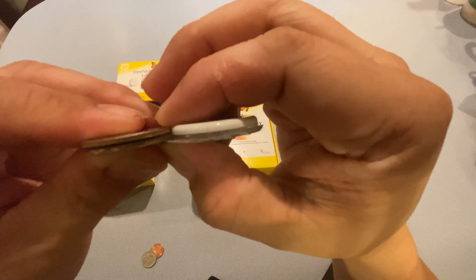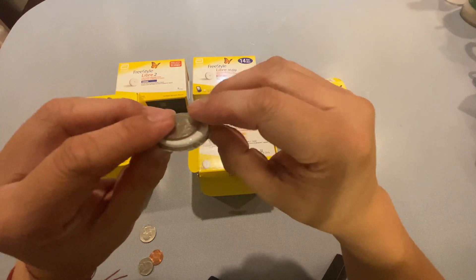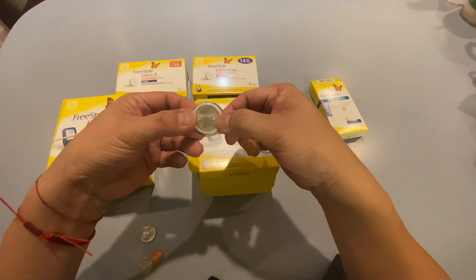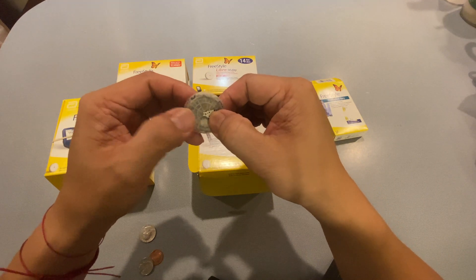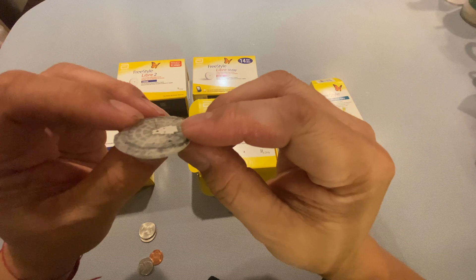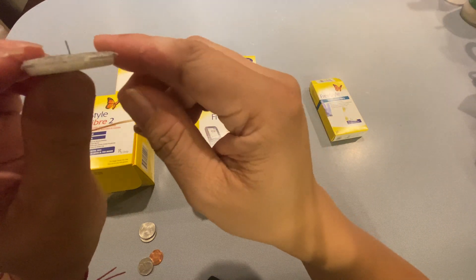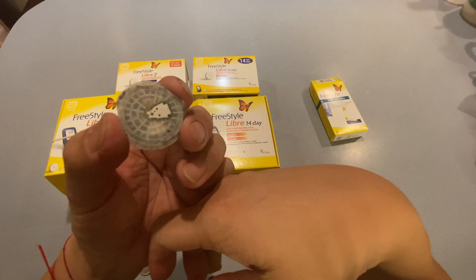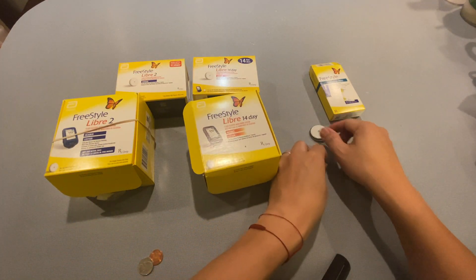I'll try and get a close-up of that. About the size of two quarters stacked on top of each other in height, and slightly larger than a quarter in diameter. This operates basically with a filament — the adhesive is pretty much worn off on this used sensor, but it's still kind of gooey. The filament is right there — almost like a thick hair. When applied properly, it doesn't hurt; you don't really feel it. You do have to be careful not to bang the sensor around or hit it against anything.